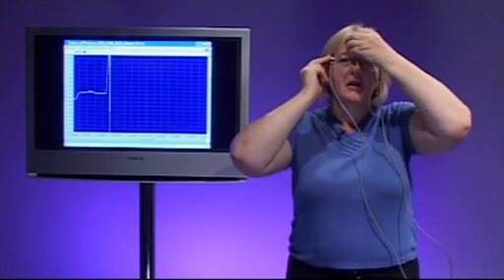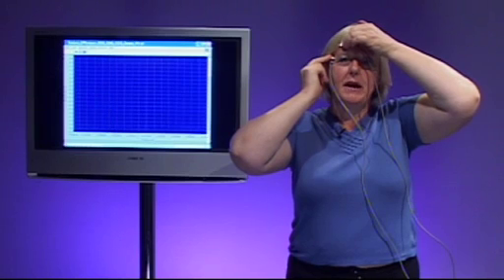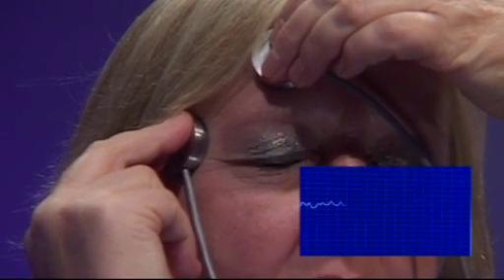I can also put one of them above my eye and when it's settled down again, I'll pick up the blinking signal that we get. Just wait for a few seconds and then as I blink, you can see a regular change in the signal.